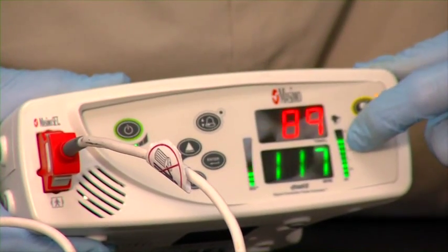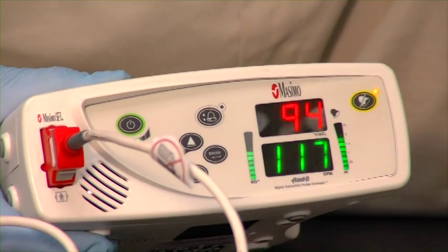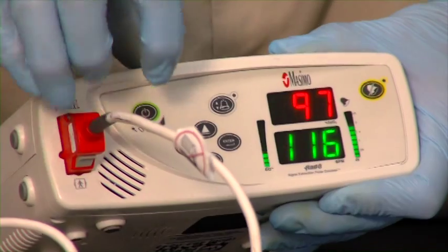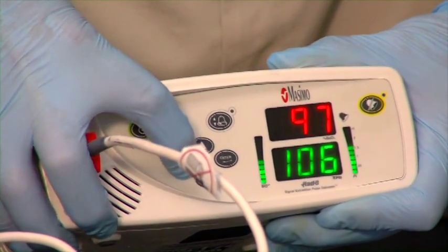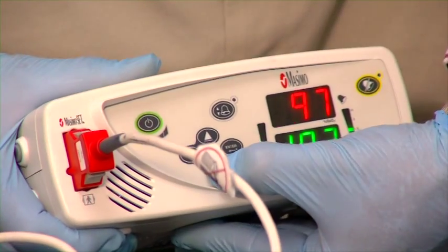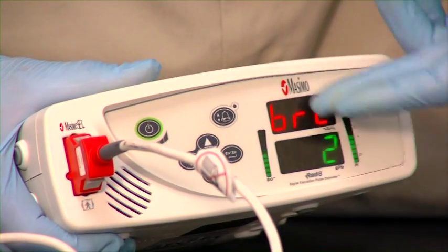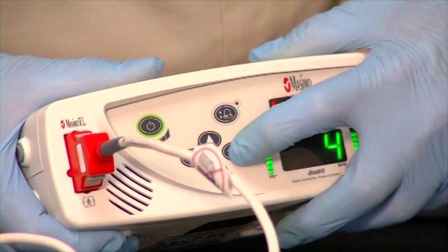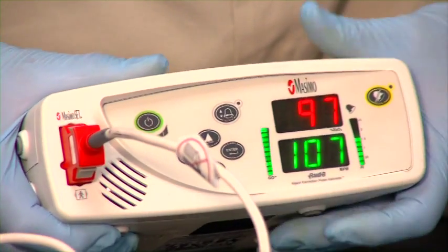There are signal bars on the side of the unit — depending on how many lights are lit up, it tells us how strong a signal we're getting. To reduce the volume, we just use the down arrow. If we want to adjust the display brightness, we press our light button. If it's night, maybe we want a little less light; if it's during the day, we might want it nice and bright. Press our enter button and we're set on the light level.